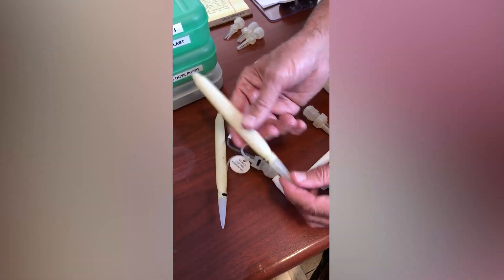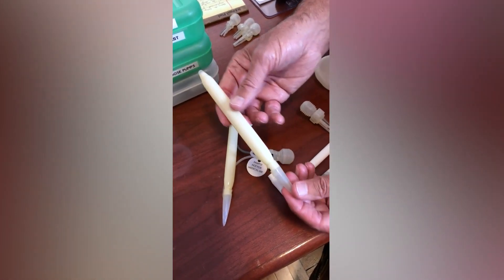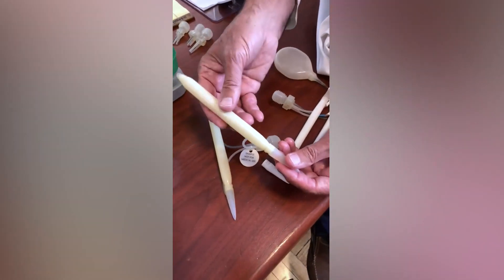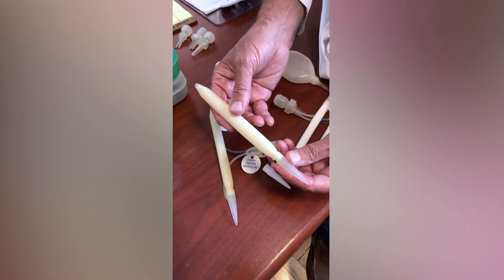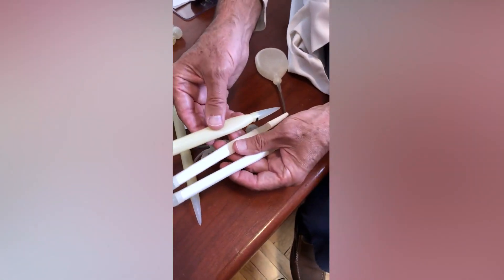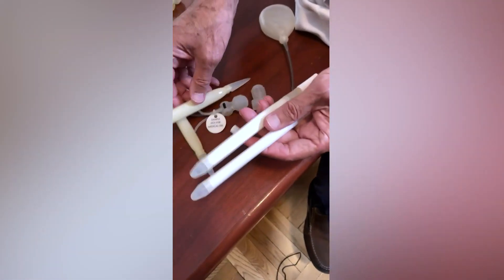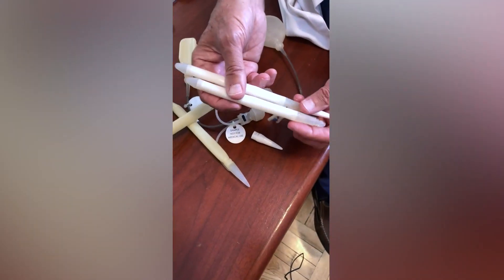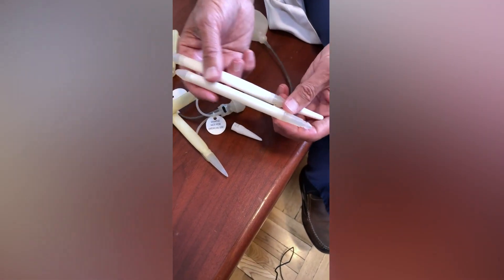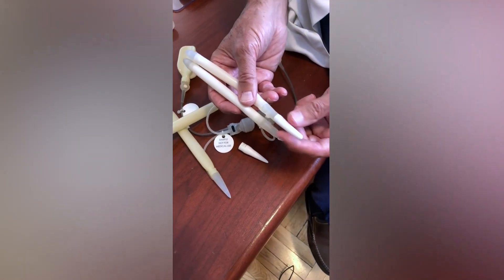It's much better to do that, and it's something we've learned from doing a lot of implants over time and seeing patients in the post-operative period at 3 months and 6 months after surgery. It's very important to pick the right cylinder. Now this is an AMS cylinder, and you can see there is a definite difference in the girth of the cylinder. This is also a very good device, and the non-inflatable back portion is 4.5 centimeters — a little less than the Coloplast implant.